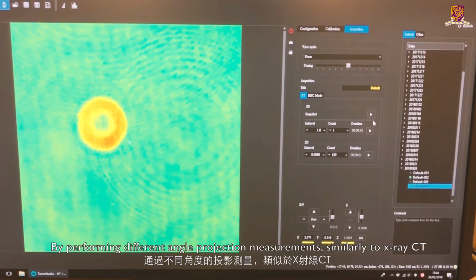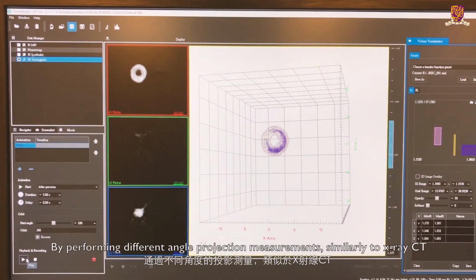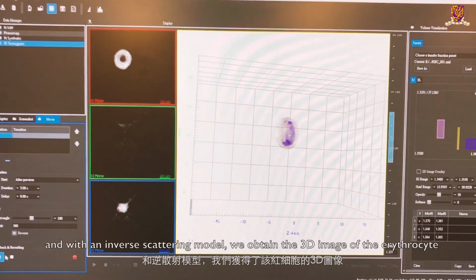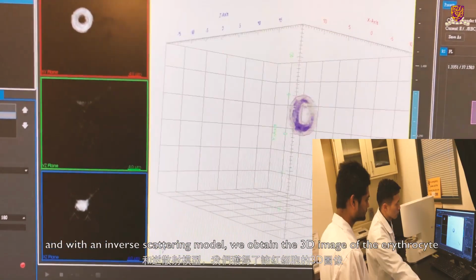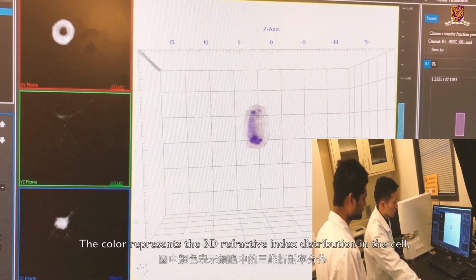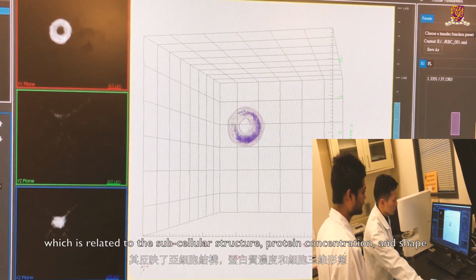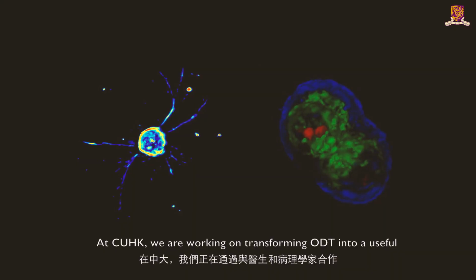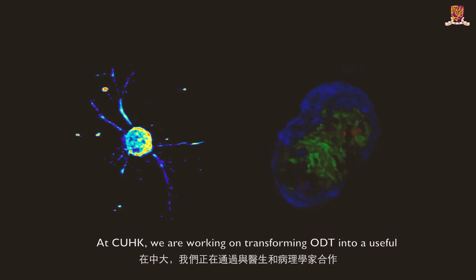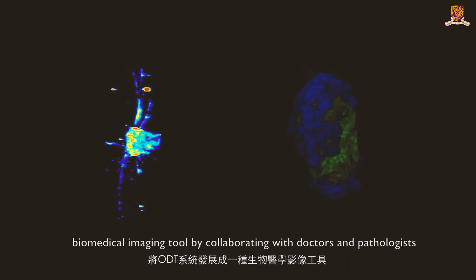By performing different angle projection measurements similar to X-ray CT, and with an inverse scattering model, we obtain the 3D image of the erythrocyte. The color represents the 3D refractive index distribution in the cell, which is related to the subcellular structure, protein concentration, and shape. At CUHK, we are working on transforming ODT into a useful biomedical imaging tool by collaborating with doctors and pathologists.